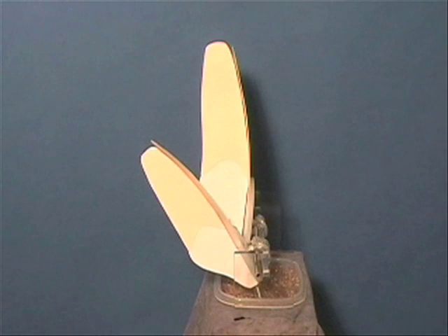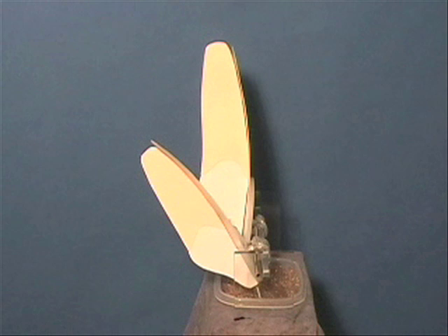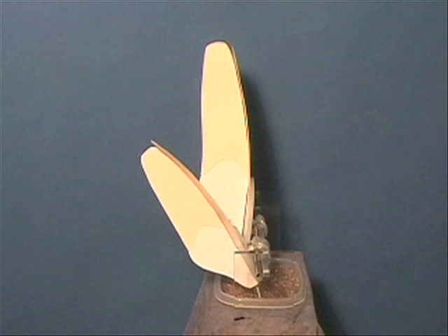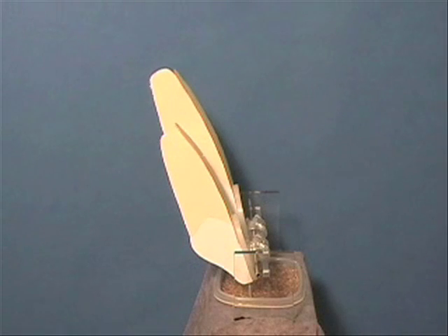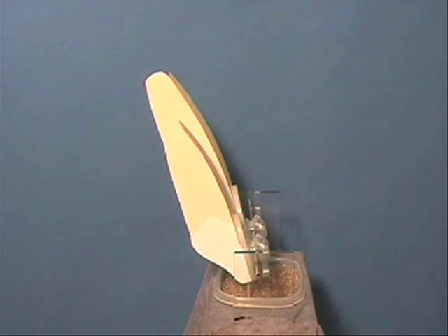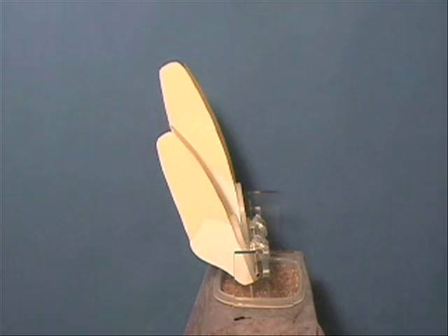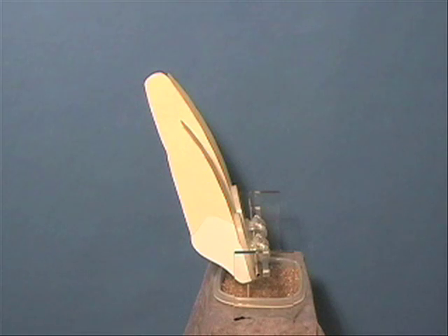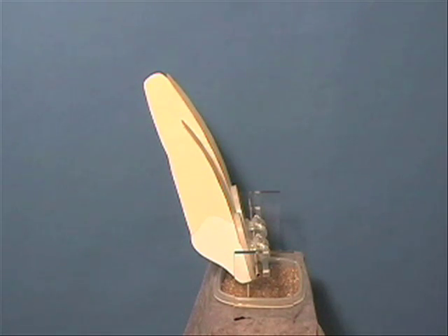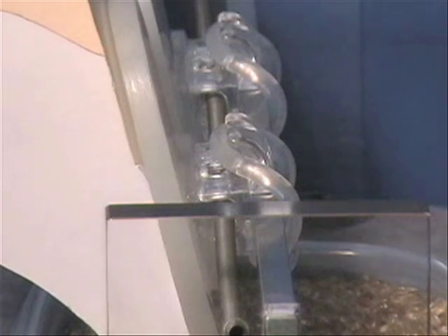When viewing the fixture from the side, it is possible to appreciate how the unique arch wire slot can automatically translate second-order forces into third-order torque movements. These teeth can be torqued simultaneously in either direction without removing or readjusting the main rectangular arch wire. Note in this demonstration, as is so often the need in the mouth, the lateral incisor root is torqued labially while the central incisor is torqued palatally. Yet all the while the rectangular arch wire is not flexed — it remains passive.